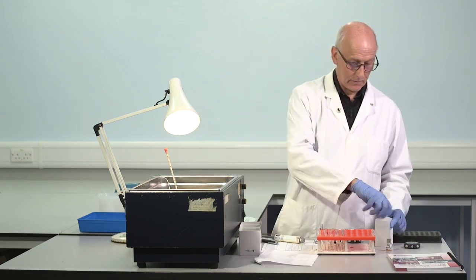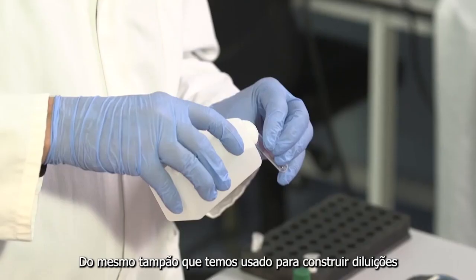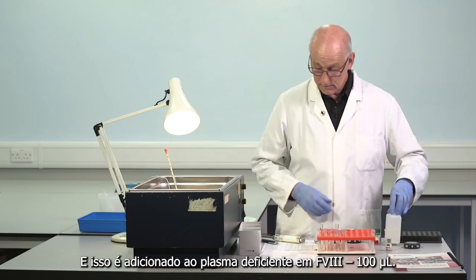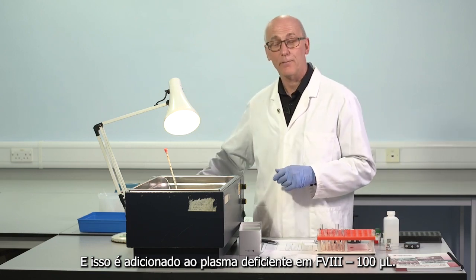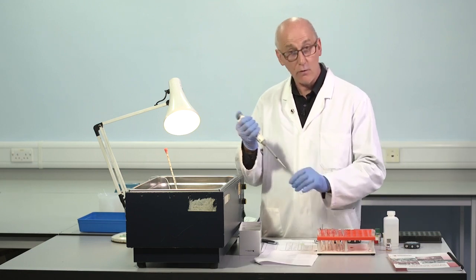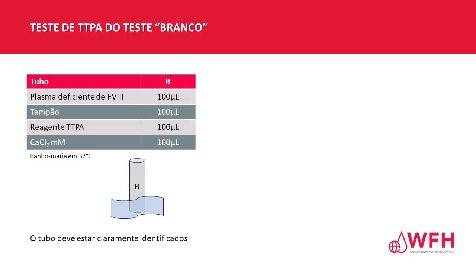So I need the same buffer we've been using to construct dilutions, and this is added to the factor VIII deficient plasma, 100 microlitres. So it's in place of the dilution. No factor VIII in the buffer, of course. So there's just deficient plasma and buffer.